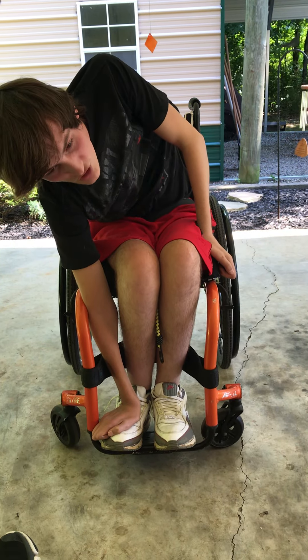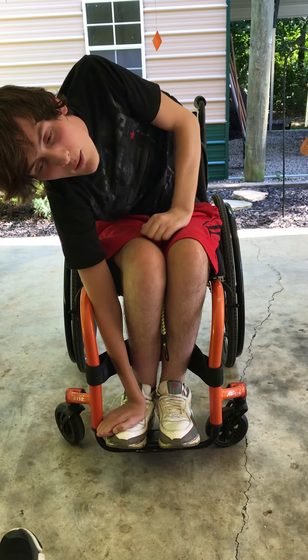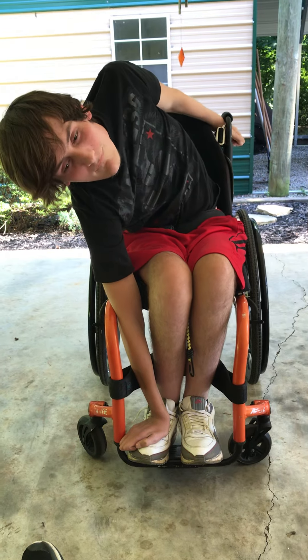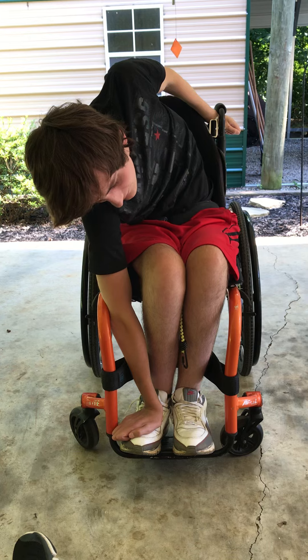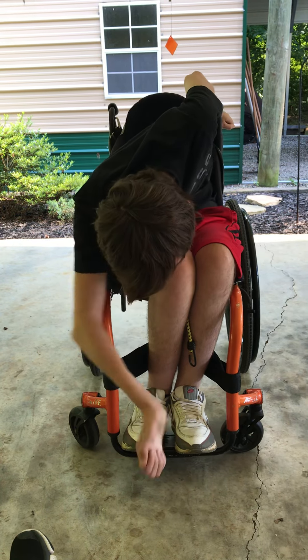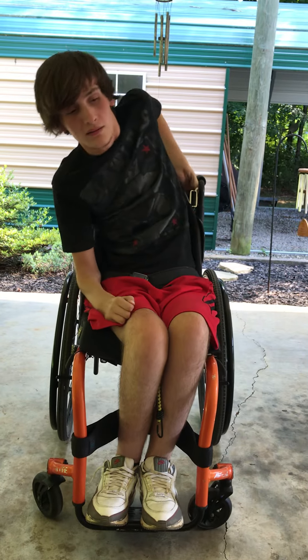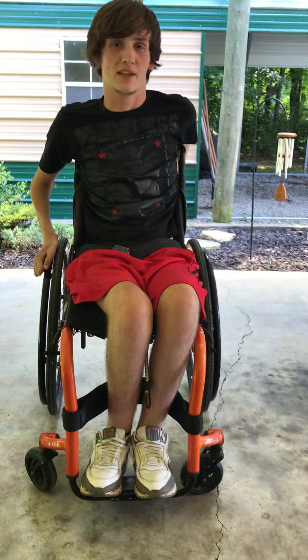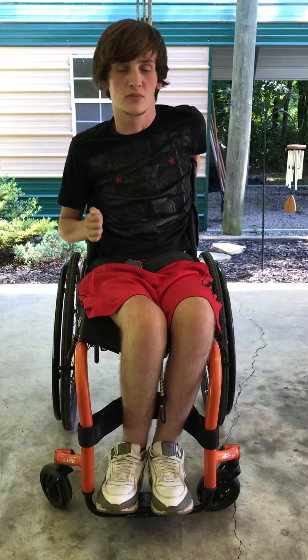While I've got myself pushed up through my shoulder, I'll throw this hand back. Now I've got my wheelchair back here — I'm going to get off this shoulder, throw this hand back, and pull myself up. There you go, that's how you do a weight shift in a manual chair without triceps.